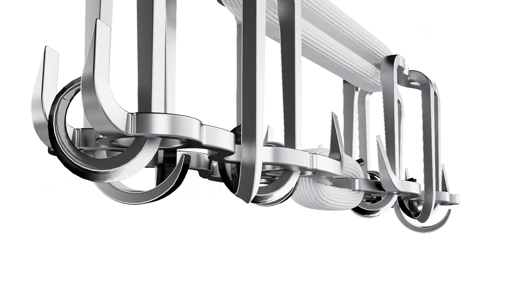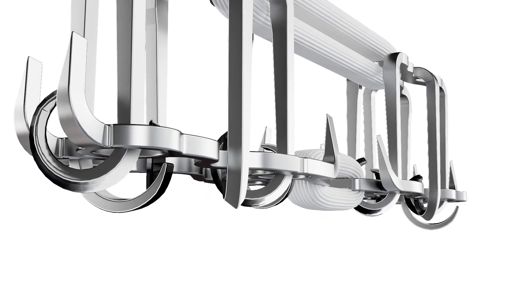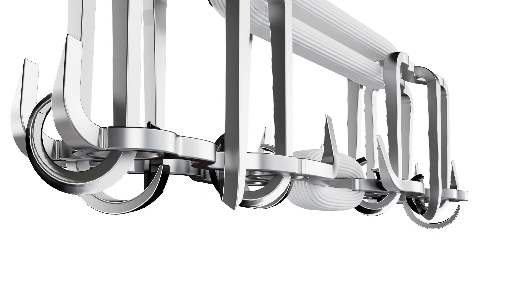During implantation, the top component of the anchors forms around the bottom component, creating a single construct.